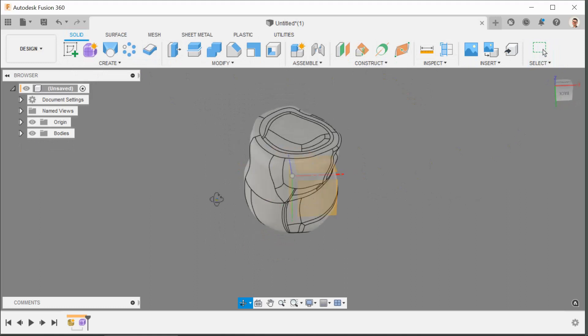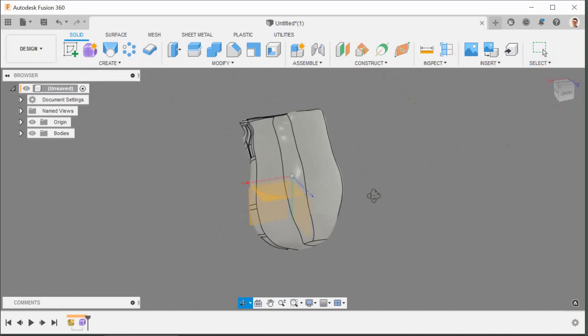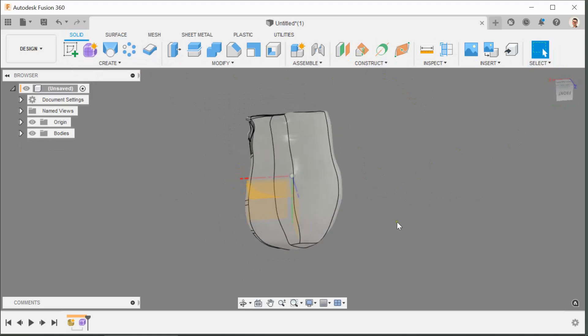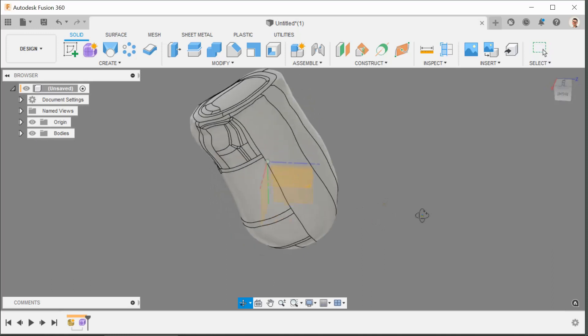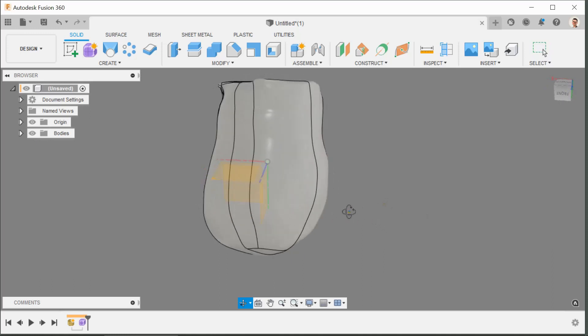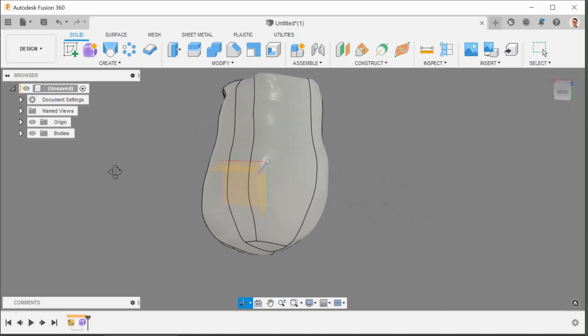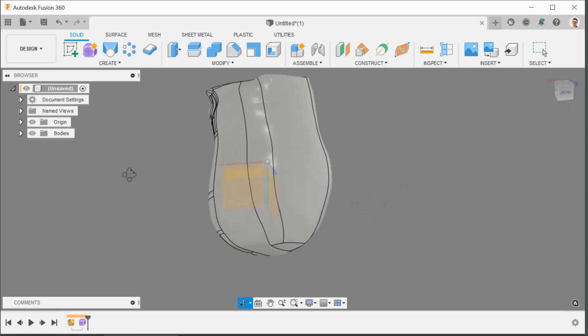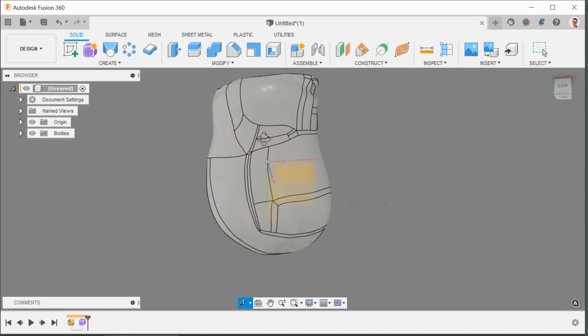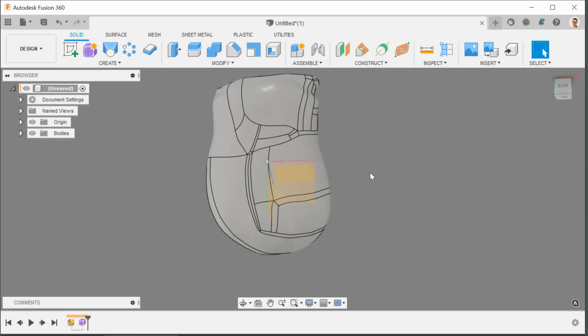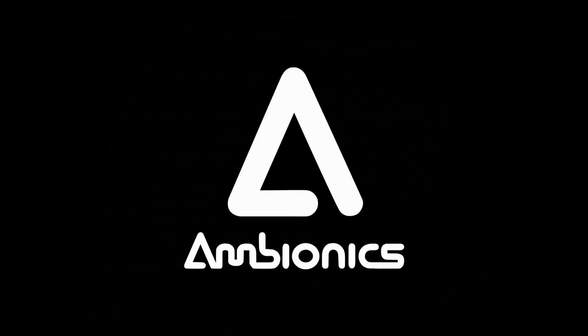So that's really stage one, bringing in the mesh. We'll talk about scanning and casting and conversion of files and cleaning up scan data in subsequent videos. You now have a copy of this file to work on.